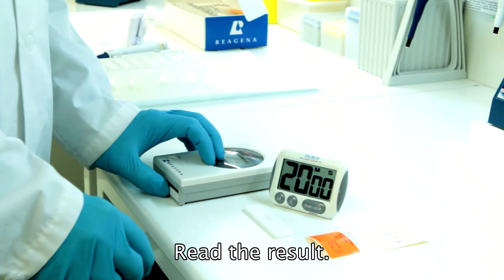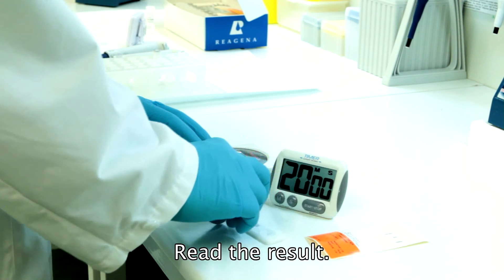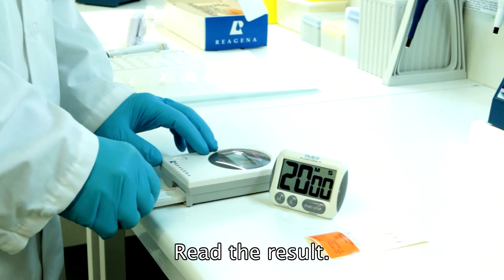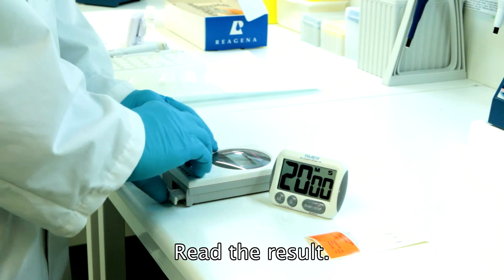After 20 minutes, read the result with the Rheascan rapid test reader. The reading time frame is 19 to 21 minutes.